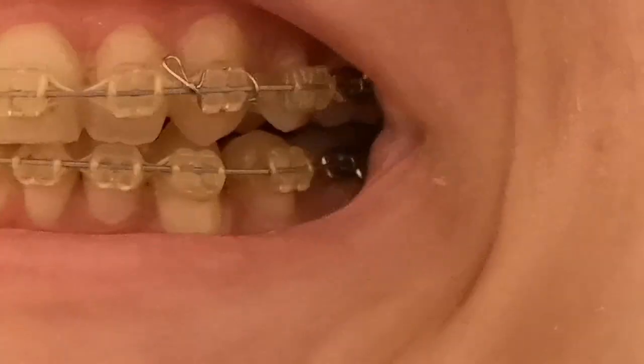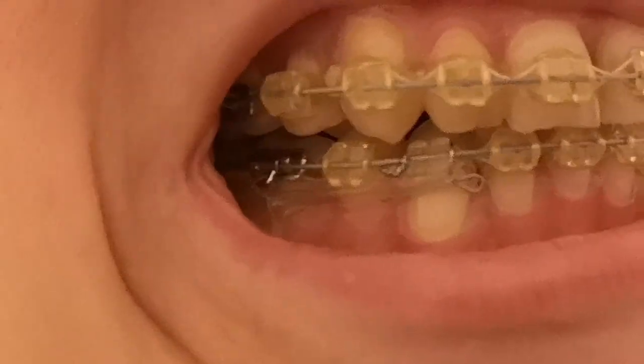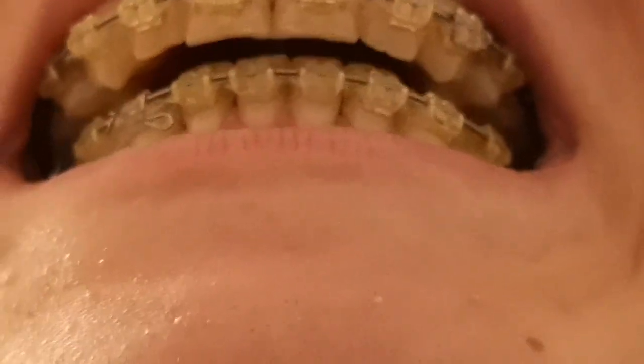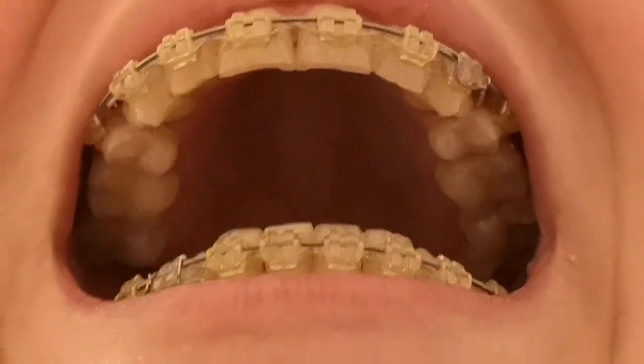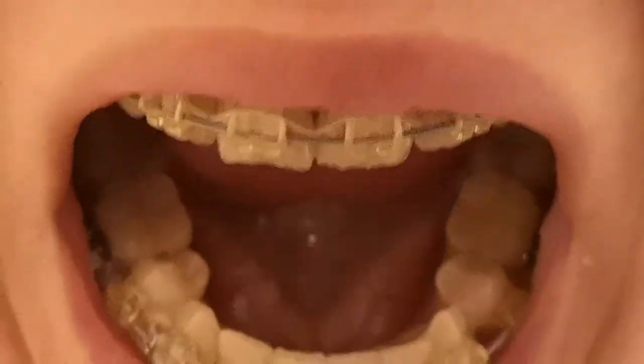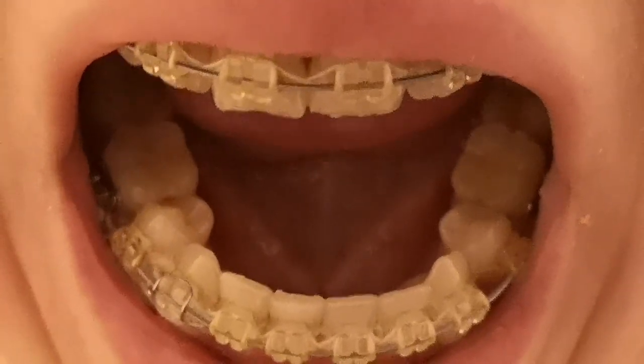At present there's an open bite on the left side; the right side isn't too bad. The centre line hasn't really moved, the bottom left tooth seems to collapse inwards, the arch has moved to the left, and the bottom arch seems to lean as well.